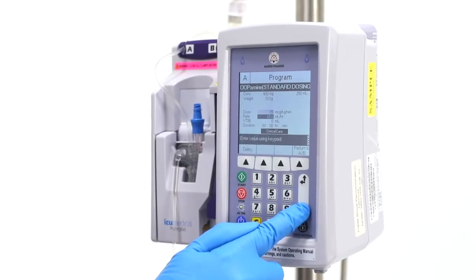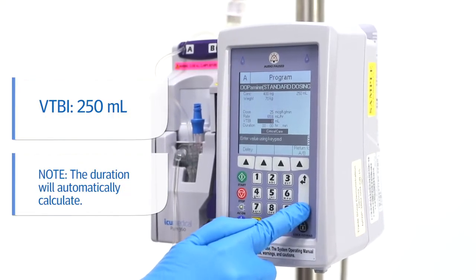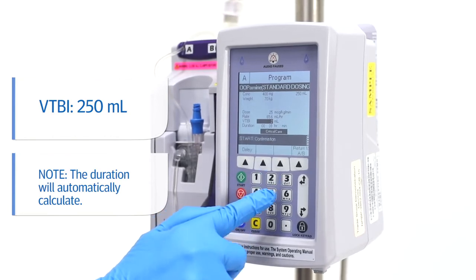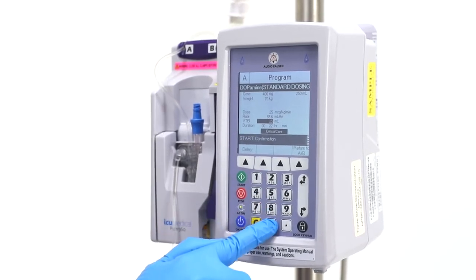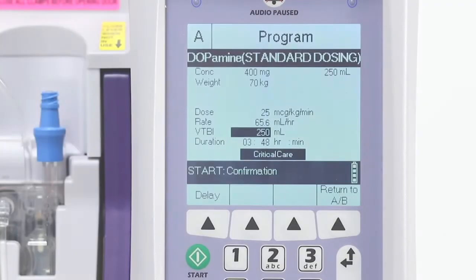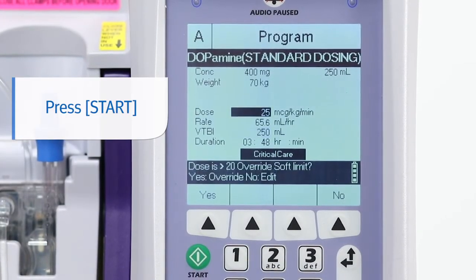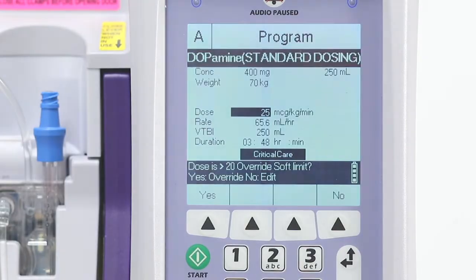Next, by pressing the select down arrow, enter a volume to be infused of 250 milliliters, and the duration will automatically calculate. Press the start key. A message appears in the message bar: dose greater than 20, override soft limit.